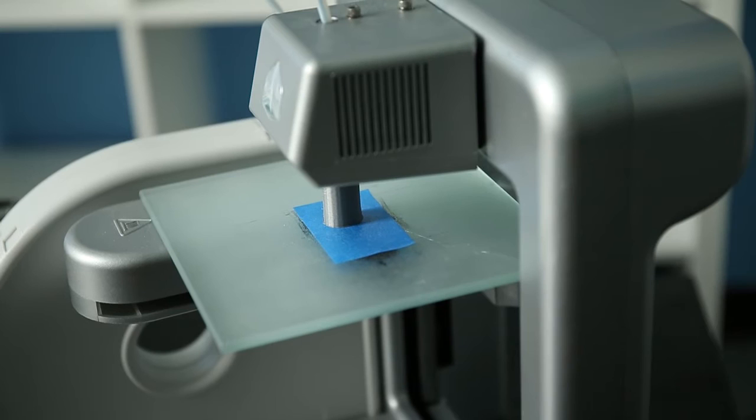To have a custom mallet finger splint made by a hand therapist, the patient usually has to cover the hand therapist's labor time as well as the material cost.